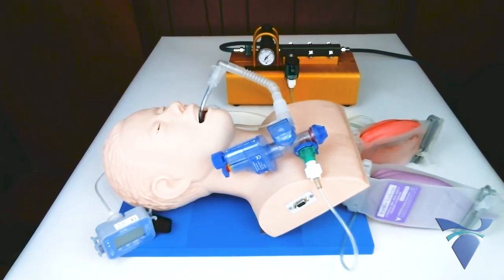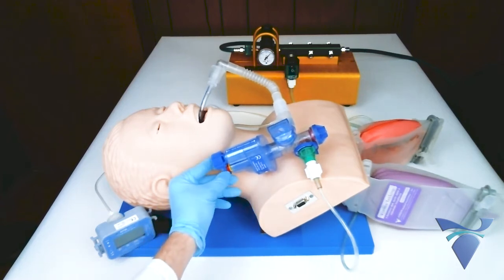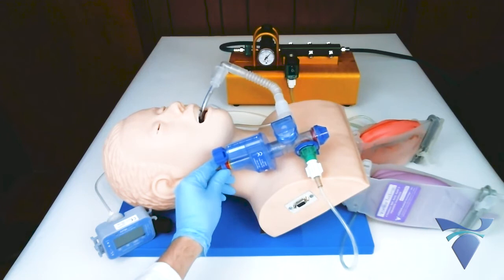For Step 3, keep in mind that the GoToVent has a PIP that is factory preset to 25 centimeters of water. To make any further adjustments, turn the pressure knob clockwise to increase PIP, or counter clockwise to decrease.